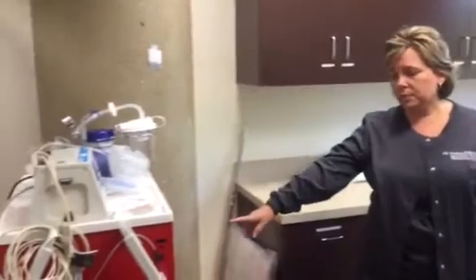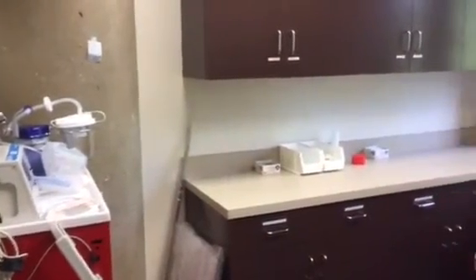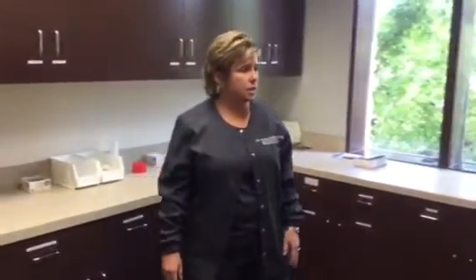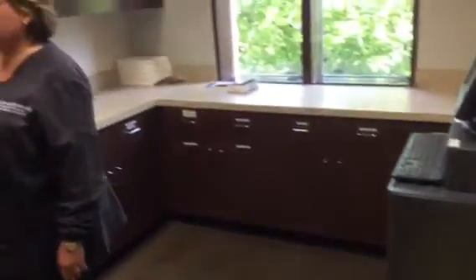Orientation video for the medication and crash cart room. In this room, you'll notice that you have several different things. You have your crash cart here. You have cabinets, drawers along these two walls. And then you have your linen cart in here, as well as your medication dispense cart, which we will cover in a different video. So in here, we'll start with the crash cart.